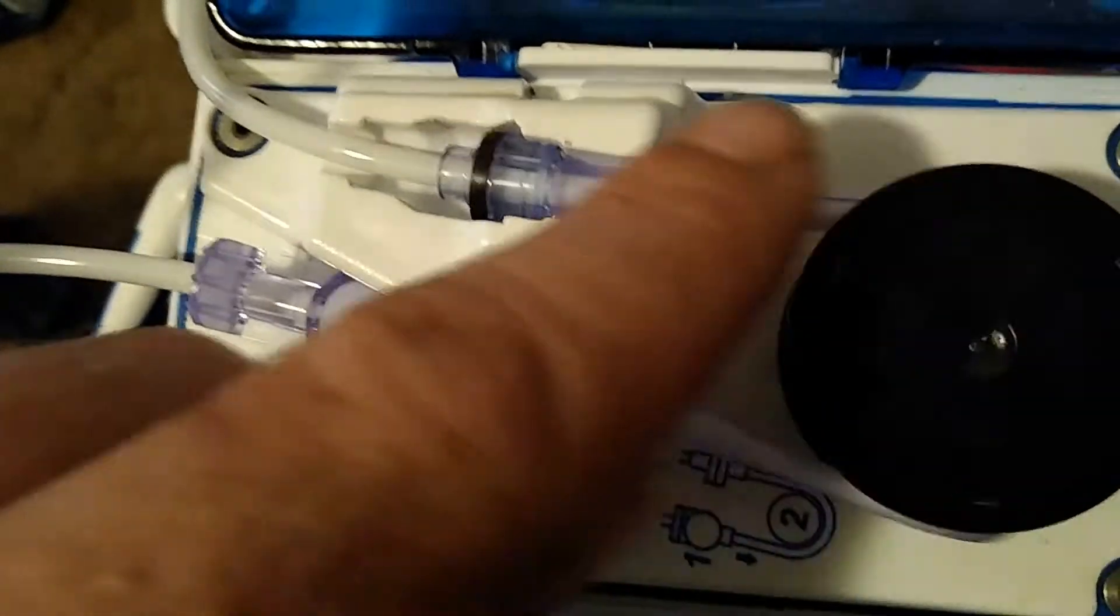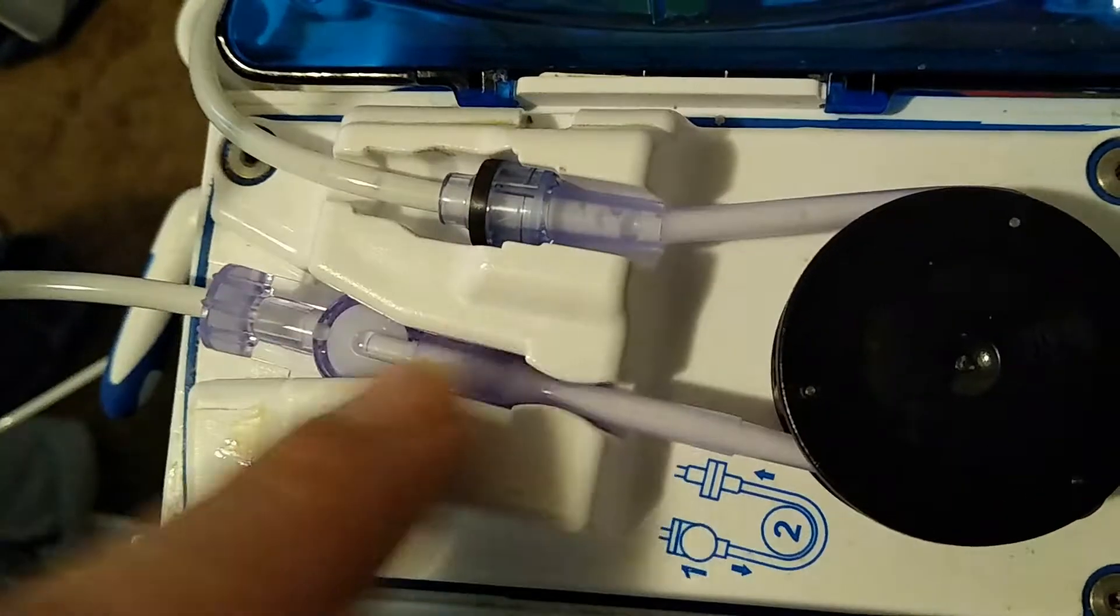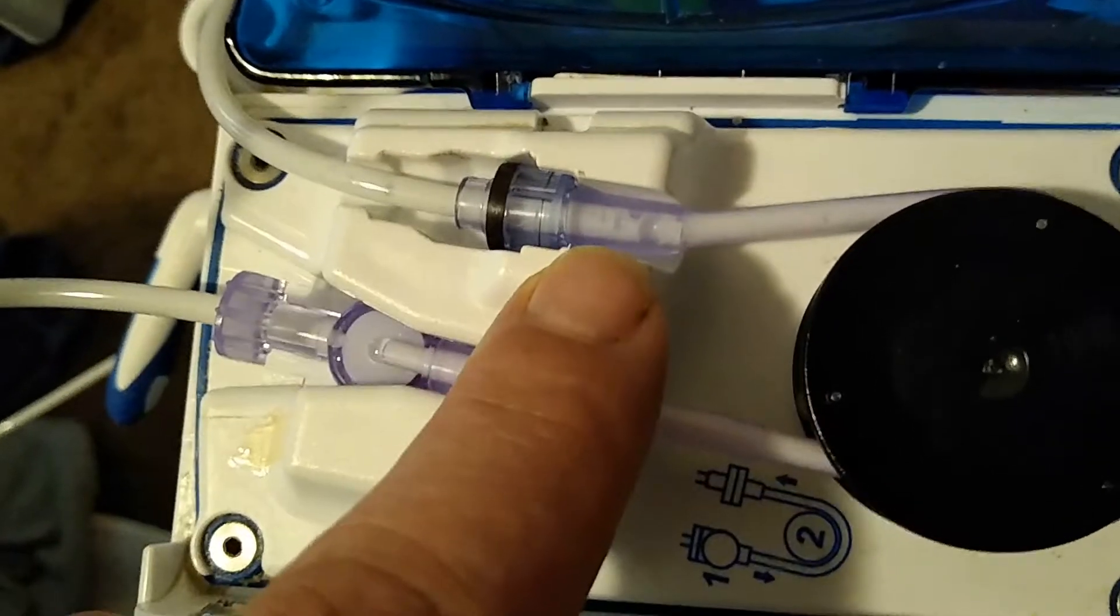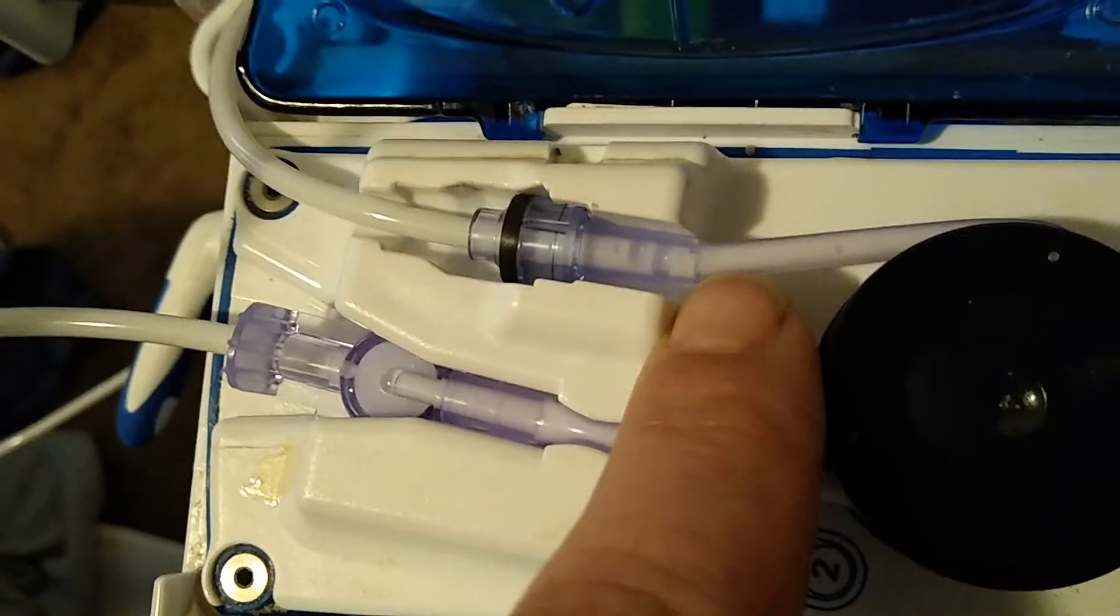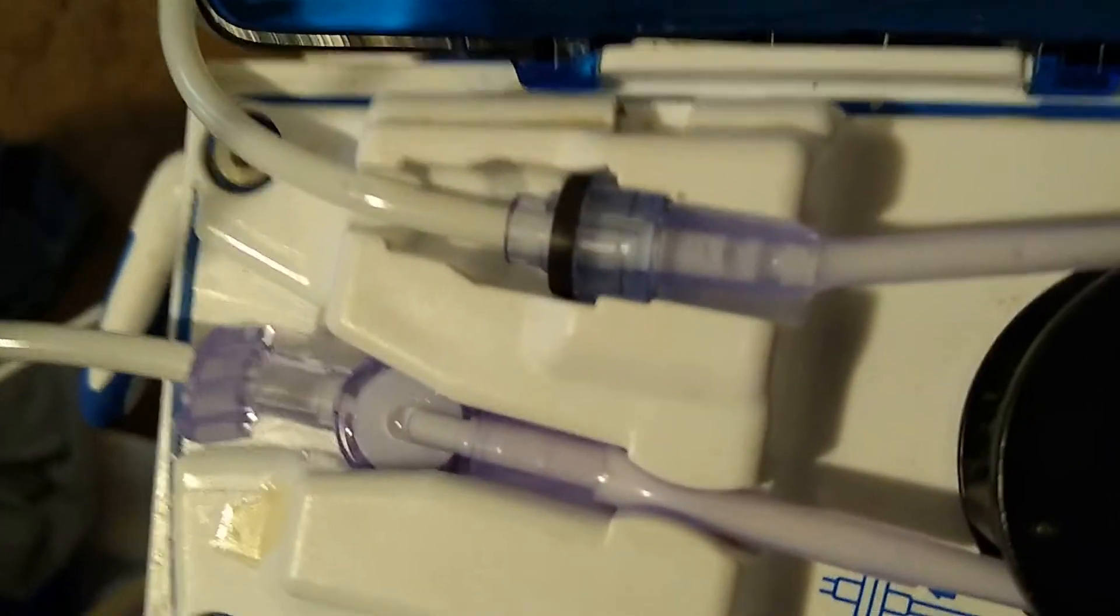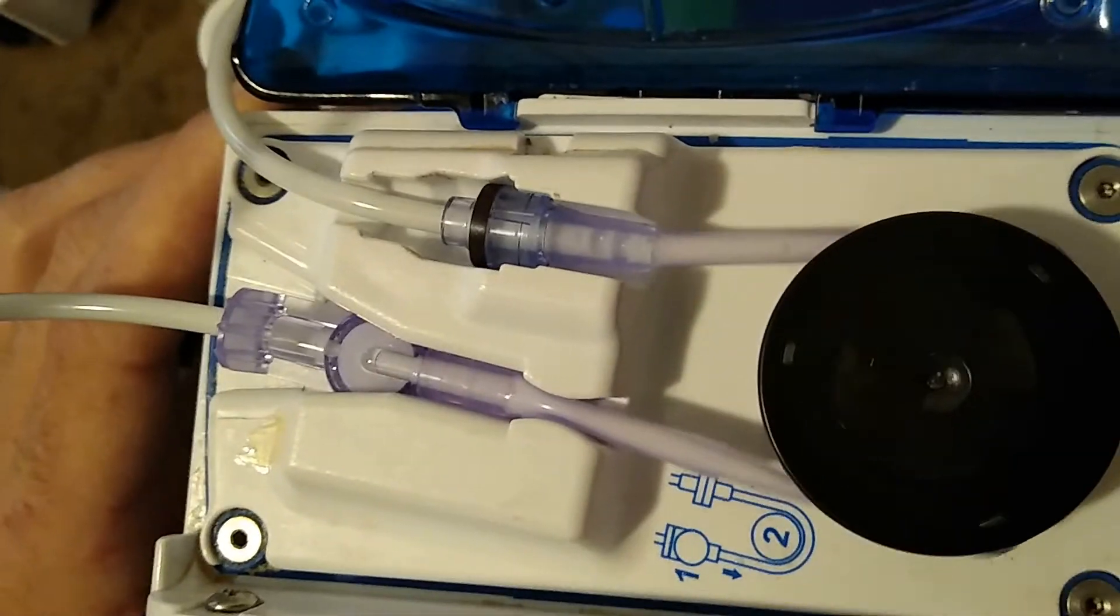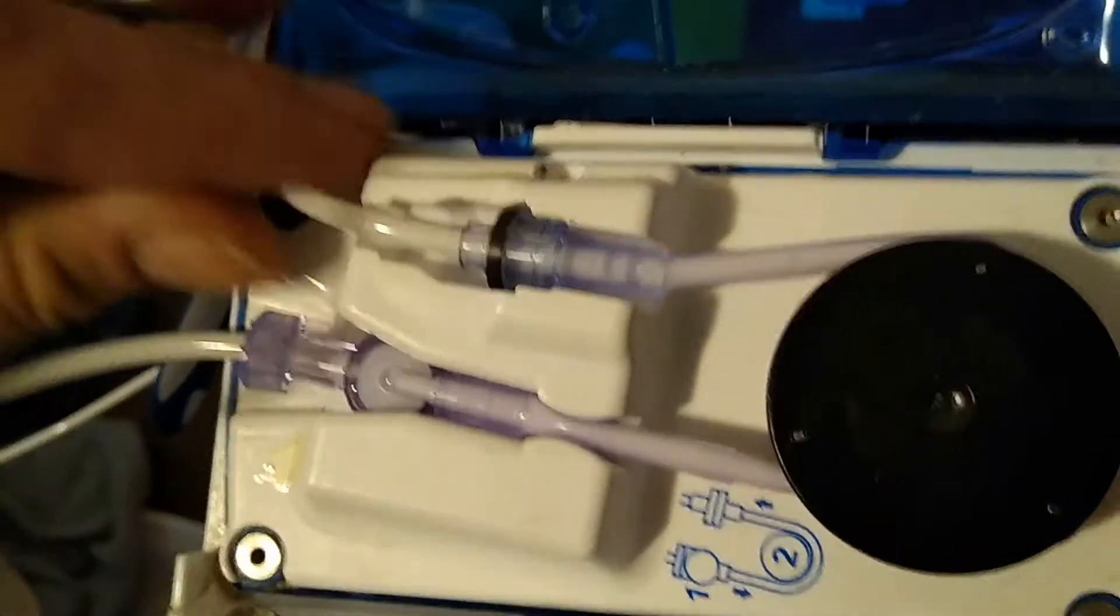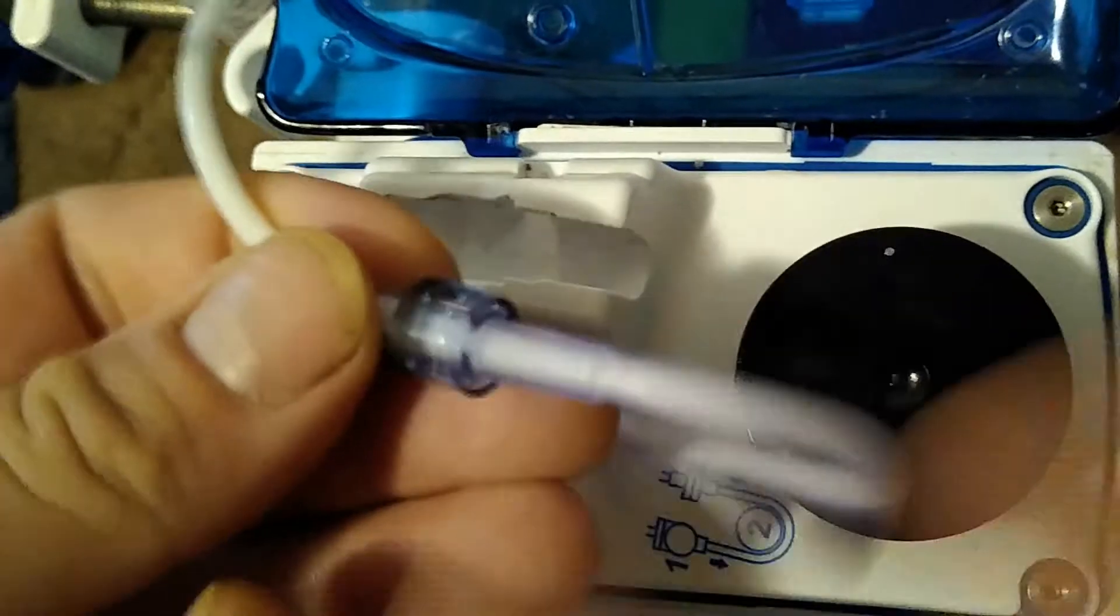So basically all the machine is reading is that there's no fluid going past. You may need to flick it a few times if you see, see how this bubble is just chilling here? So what you can do is press hold and you want to flick it a couple more times.